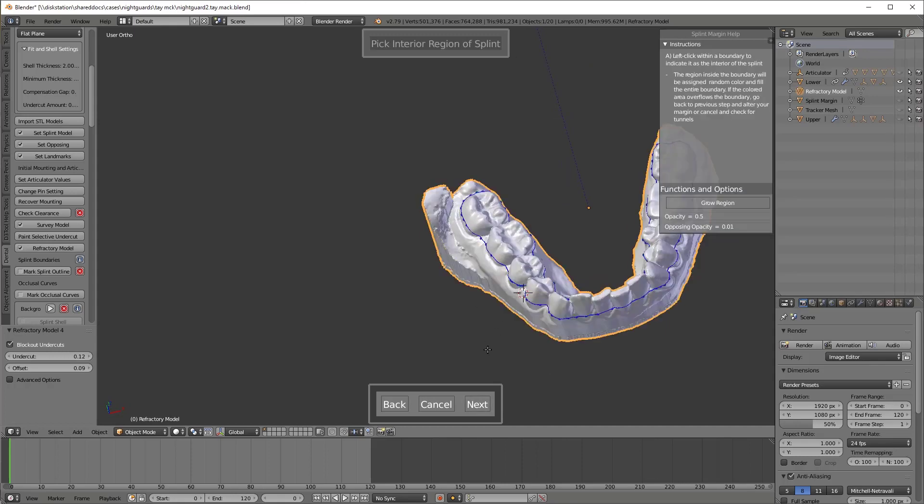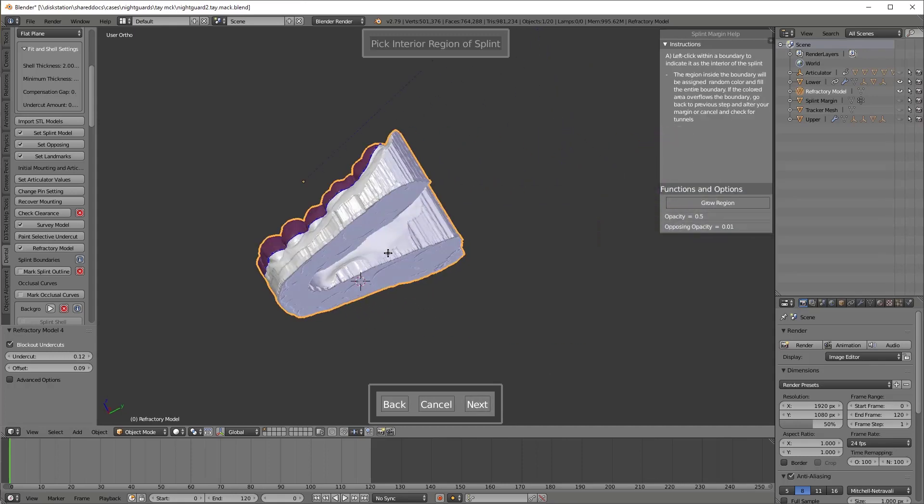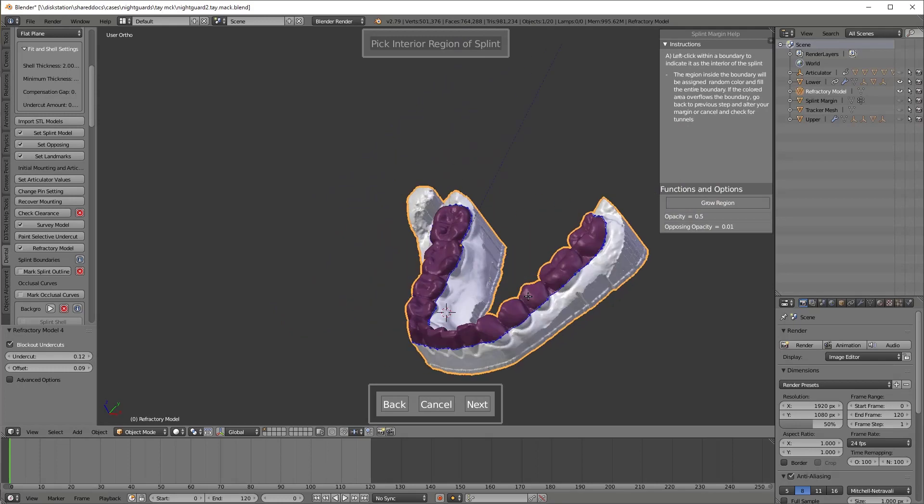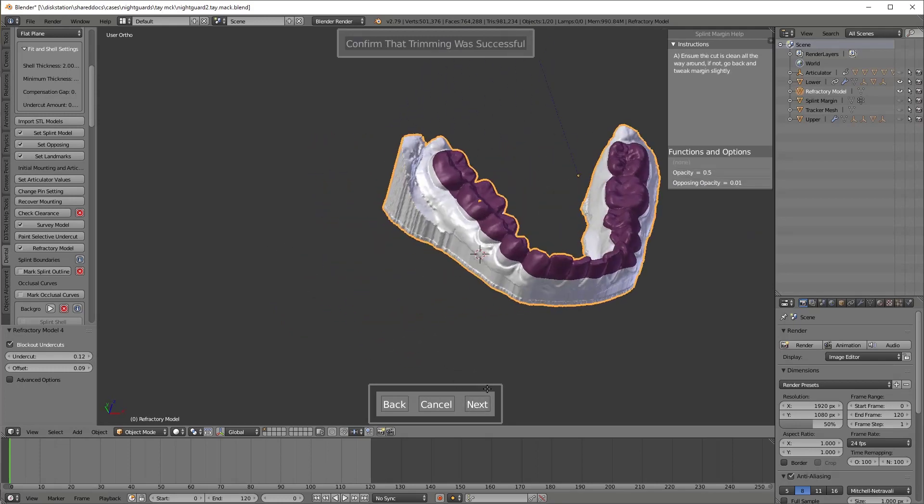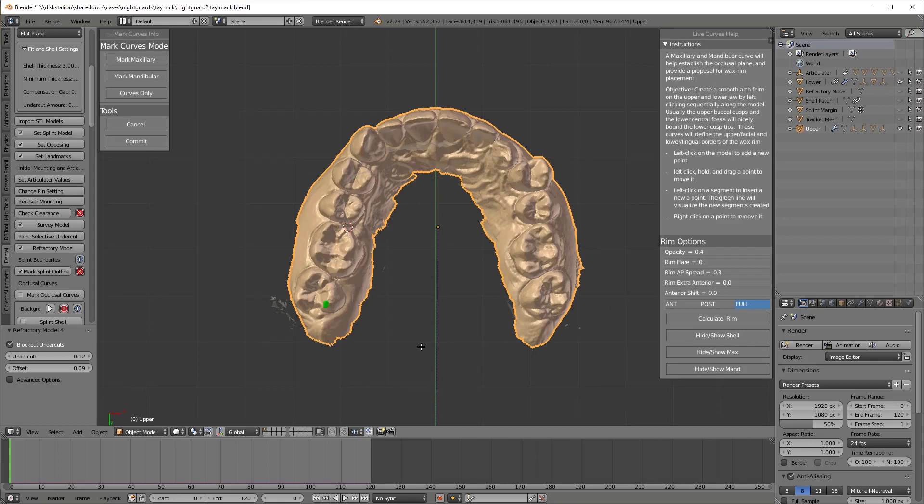Now you just hit an eyedropper inside your boundary. It turns purple. That's to confirm you have a nice watertight boundary. They're going to ask you one more time. I've never actually found a time when I needed to do anything between there and two.